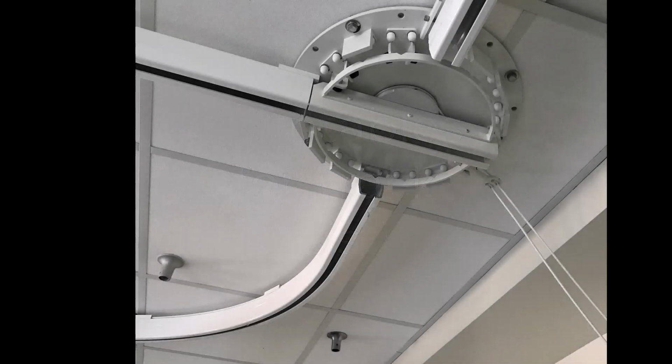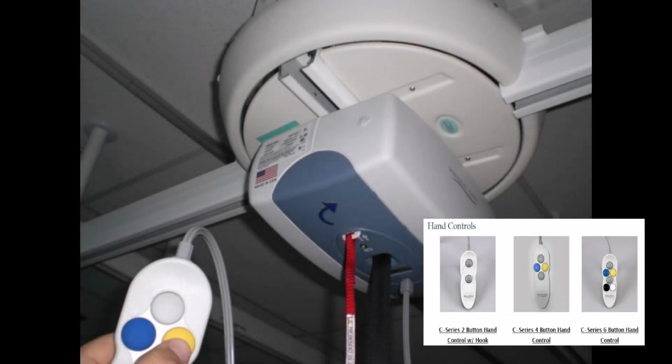Turntables. In regards to these turntables, there are currently two types. This manual 16-point turntable pictured allows the lift motor to change direction to another monorail. The turntable is operated manually by pull cords. This power version automates the process by using color-corresponding buttons on the lift motor's hand control.